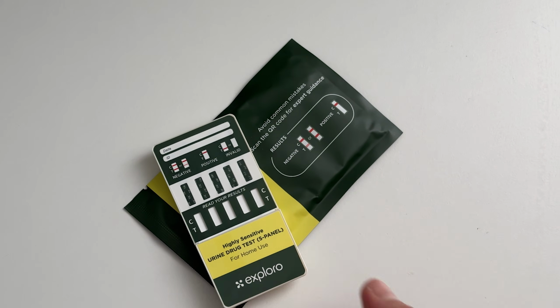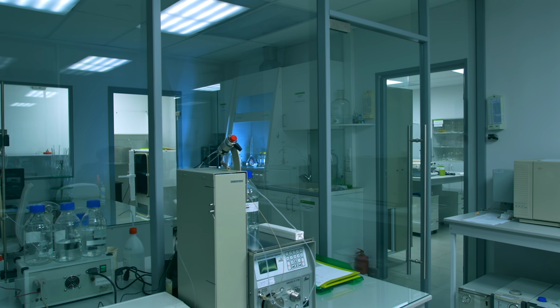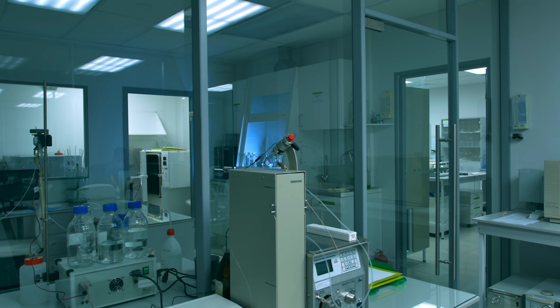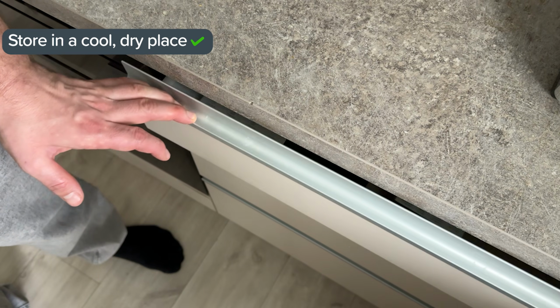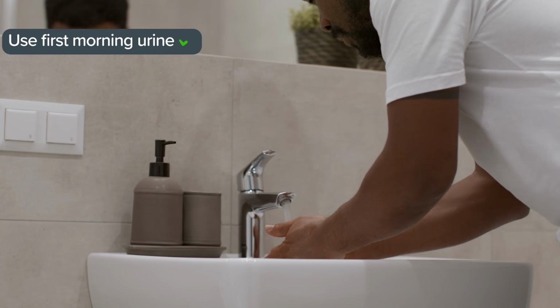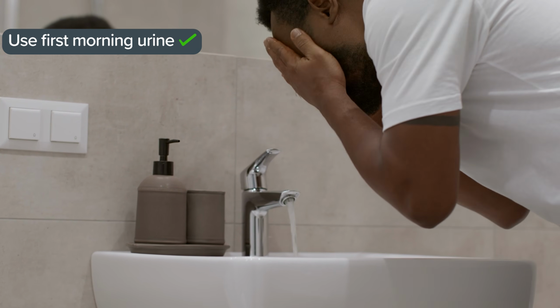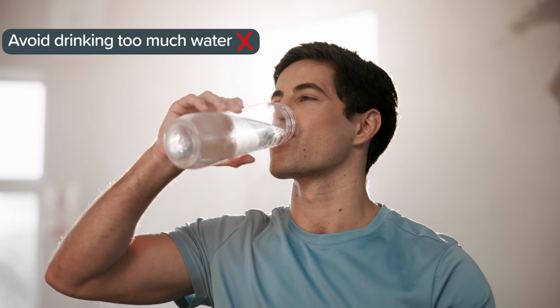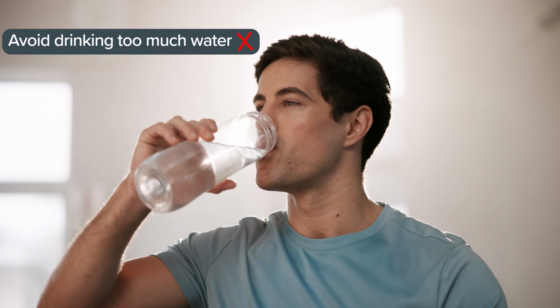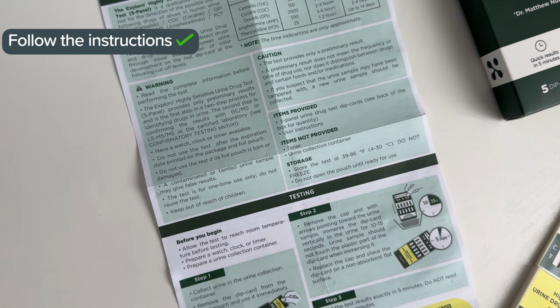Each multi-panel test kit is designed to detect multiple drug types at once using the same technology trusted in labs and clinics. Always store the kit in a cool, dry place to maintain accuracy. Use the first morning's urine for the most concentrated and accurate result. Avoid drinking excess fluids before testing, as dilution may affect accuracy. Follow the instructions exactly for precise results.